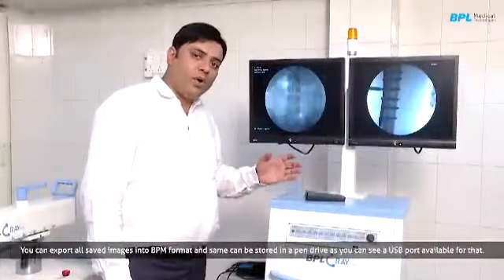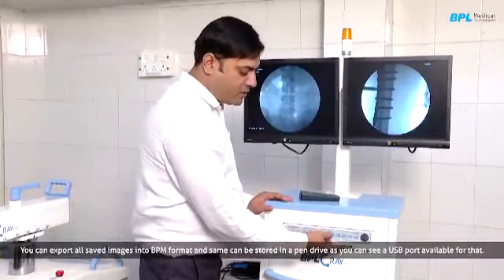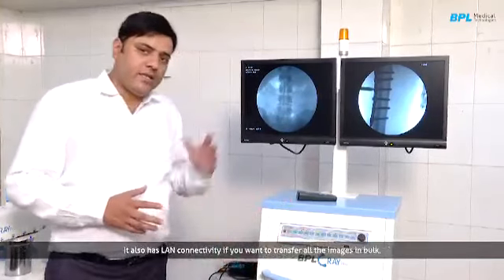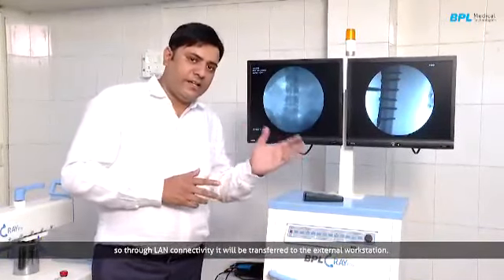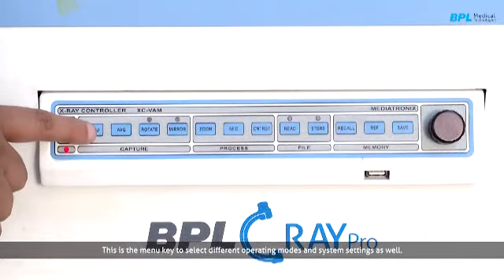You can export all the saved images into BMP format, and the same can be stored in a pen drive, and you can see the USB port is there for that. It also has LAN connectivity. If you want to transfer all the images in bulk through LAN connectivity, they can be transferred to an external workstation. This is the menu key to select different operating modes and system settings as well.